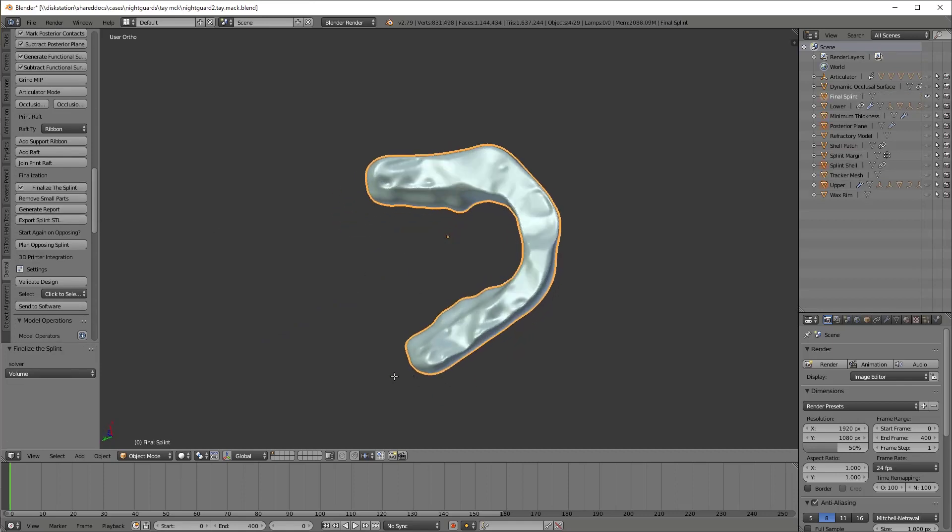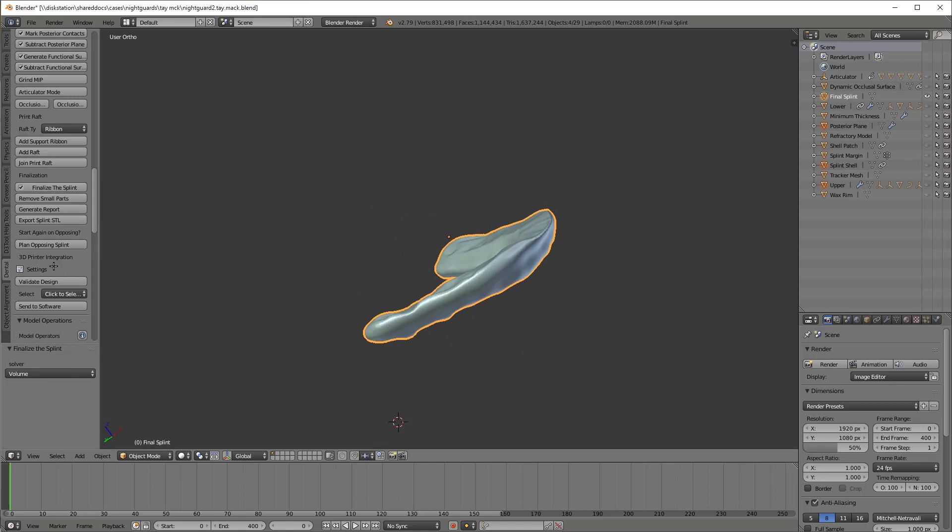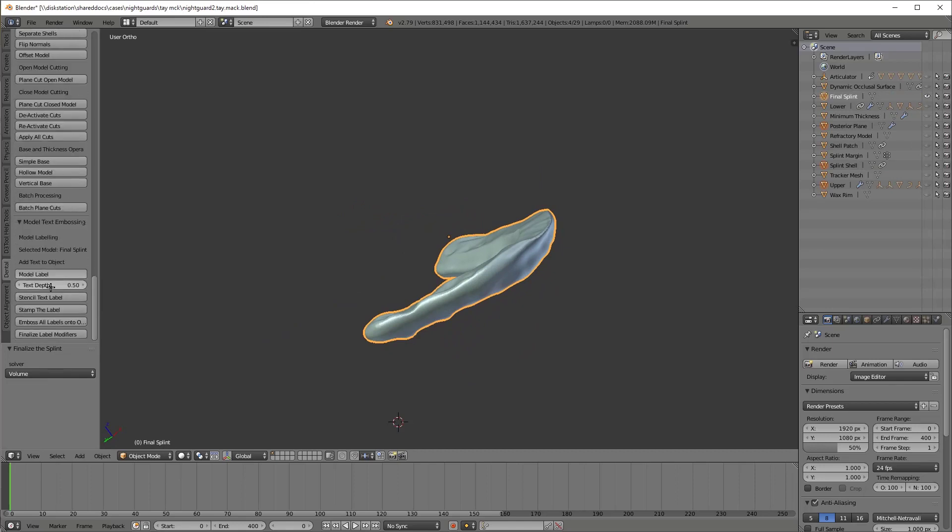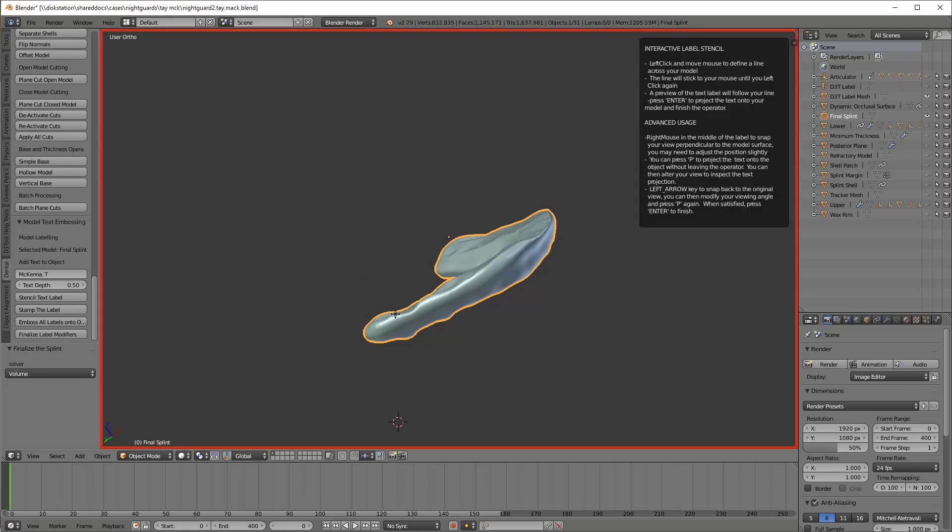Or actually not trim it. We're removing the intaglio now. So that's done. It's now hollowed out for the teeth. I'm going to emboss the patient's name on the side. Next is a final optional step. But if you're doing more than one night guard, I think it's invaluable to have the patient's name embossed on it. Otherwise, it gets very tricky to identify which night guard belongs to which patient.